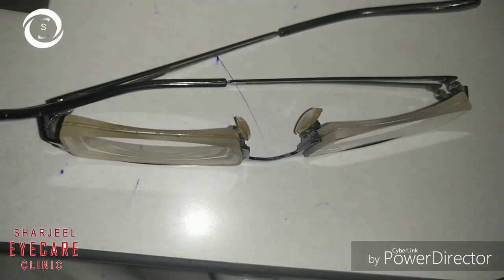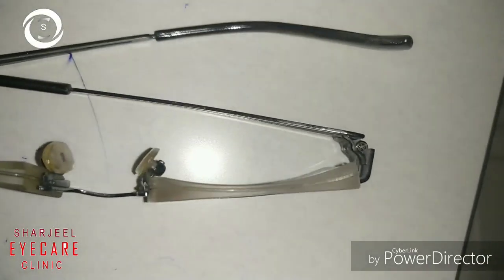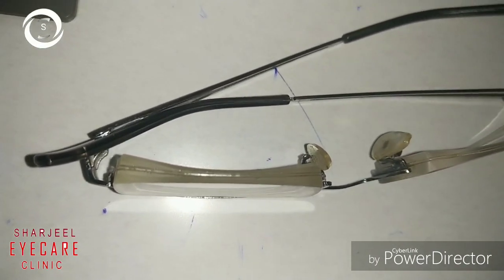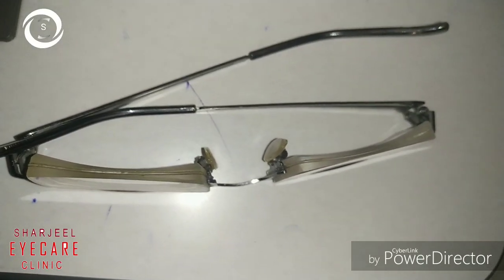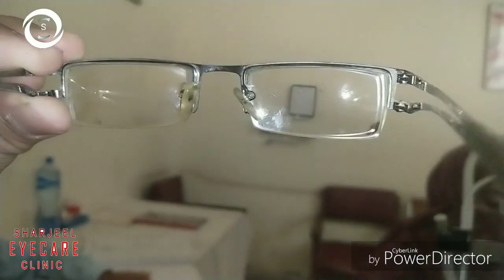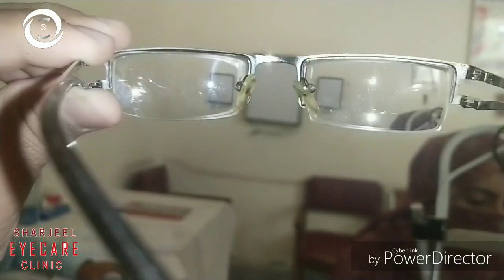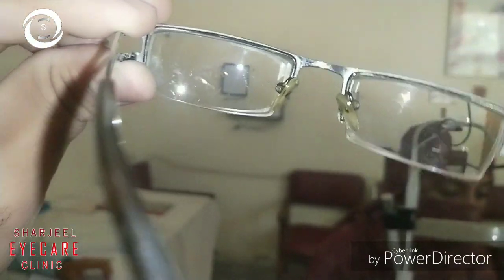Just like concave lenses — thicker peripheries and thinner centers. The image is smaller and moves in the direction of movement: if you move up and down, the smaller image will move in the same direction. You can see we are showing you the real image and the image in the minus 12 glasses, and it is moving along with the movement. That's how you diagnose myopic glasses.